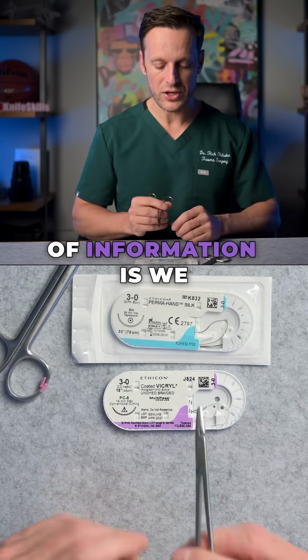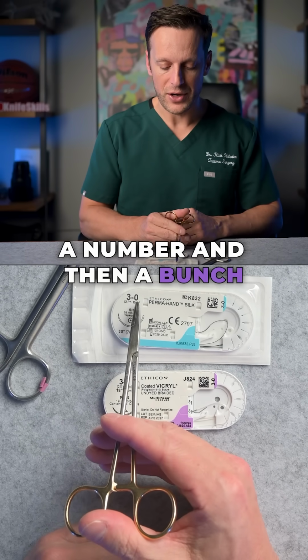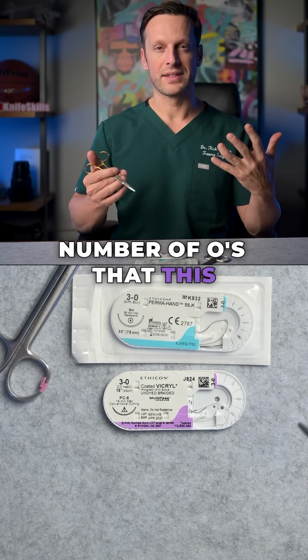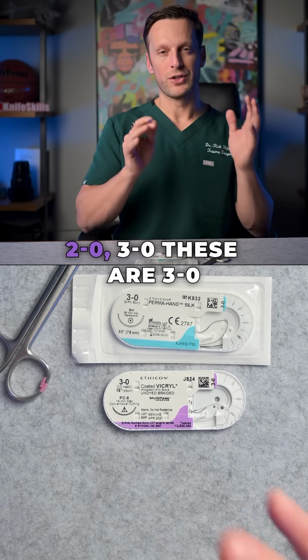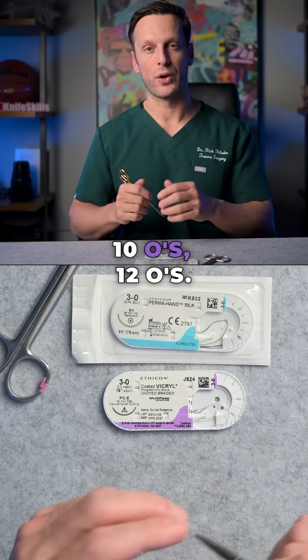The next piece of information is we oftentimes will have a number and then a bunch of O's. And that actually is a representation of the number of O's that this system is using. And the more O's, the smaller the thread size gets. So it starts as 1 O, 2 O, 3 O, and these are 3 O, and it can go all the way up to 6, 7, 8, 9, 10 O's, 12 O's.